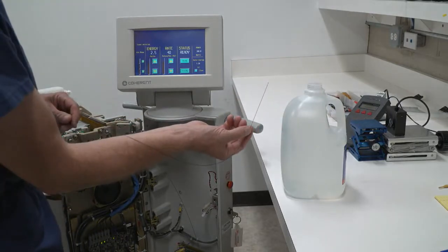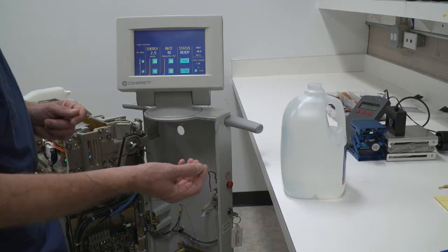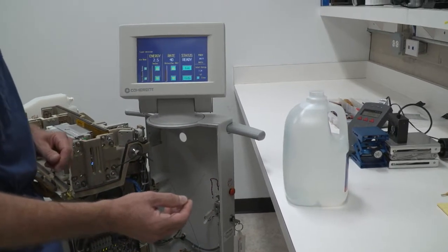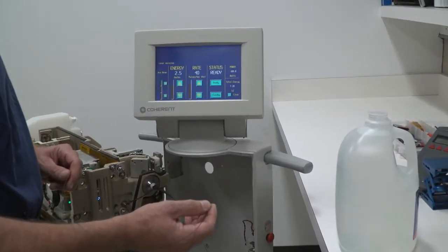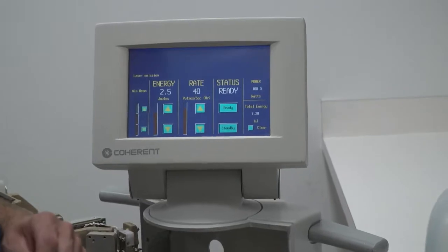The fiber's still in good shape. I have no error codes on the display. I know that my unit's calibrated. I know my safety detectors are calibrated. This is capable of running up to full power without any problems, and it's ready to be used by the doctor.